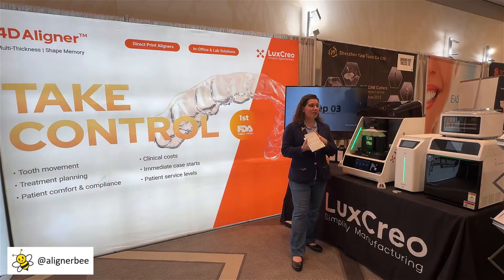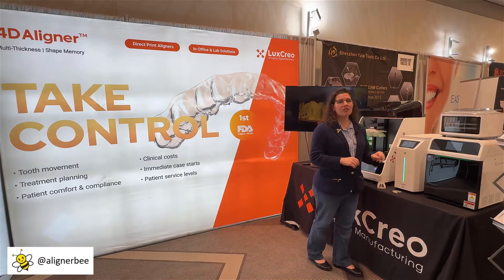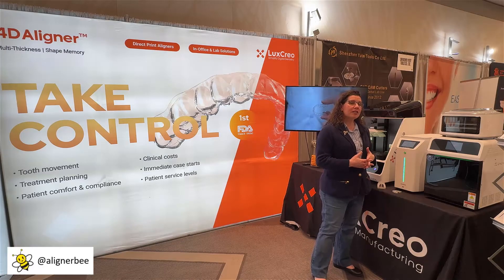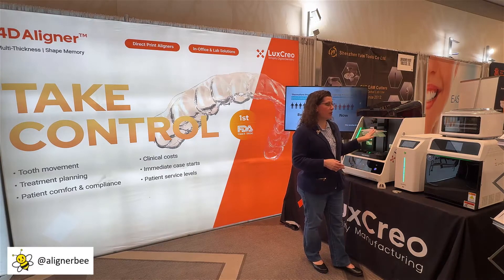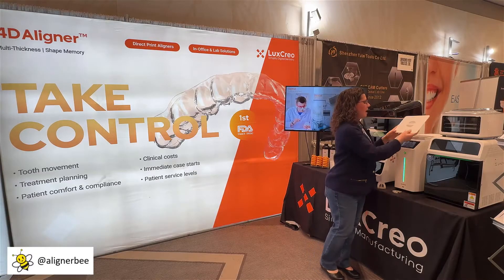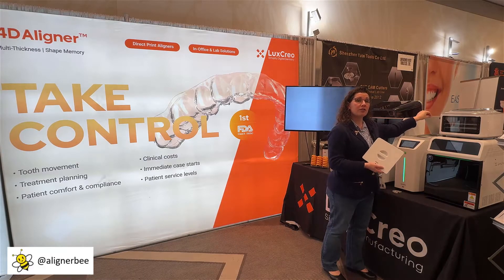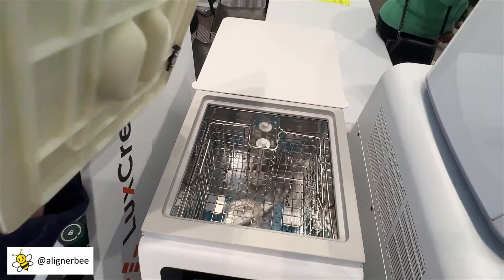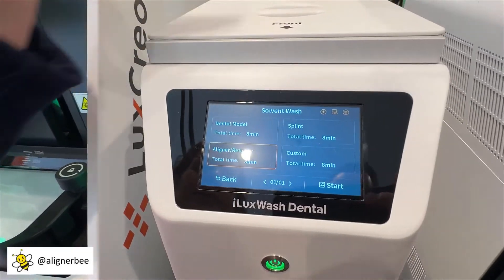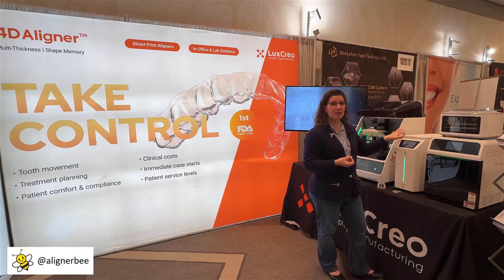After the clear aligners are done in the 3D printer there is a post-processing process. There is a new wash, dry, and cure station that have been developed. One of the factors that we have to consider in the in-office laboratory and laboratory space is the time that it takes for all of these factors. When we move from the 3D printing to the wash, this is an automated wash station where the aligners can be placed into the main basket, and it's actually a two-step wash. The first being the dirty wash to remove the bulk of the excess material, and the second to remove the other particles of material in our clean wash. The washing process takes approximately 13 minutes after the 3D prints have been finished, and in this system we're able to avoid the centrifuge of some of the traditional direct printing systems by utilizing a wash.